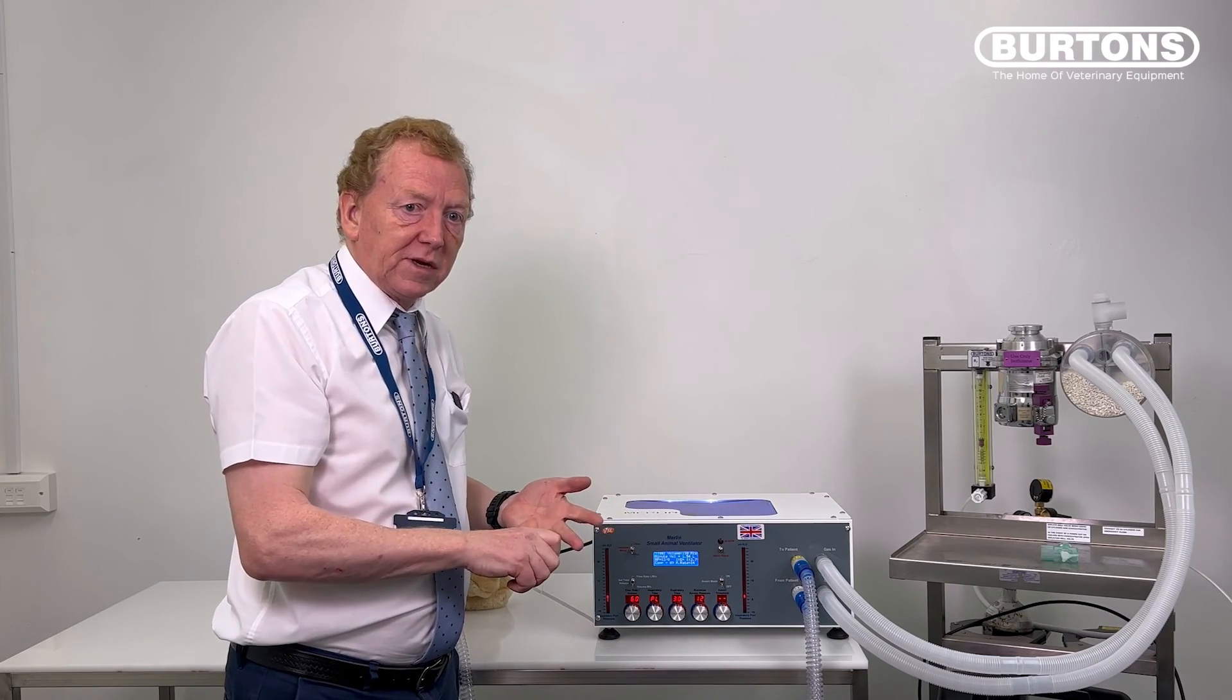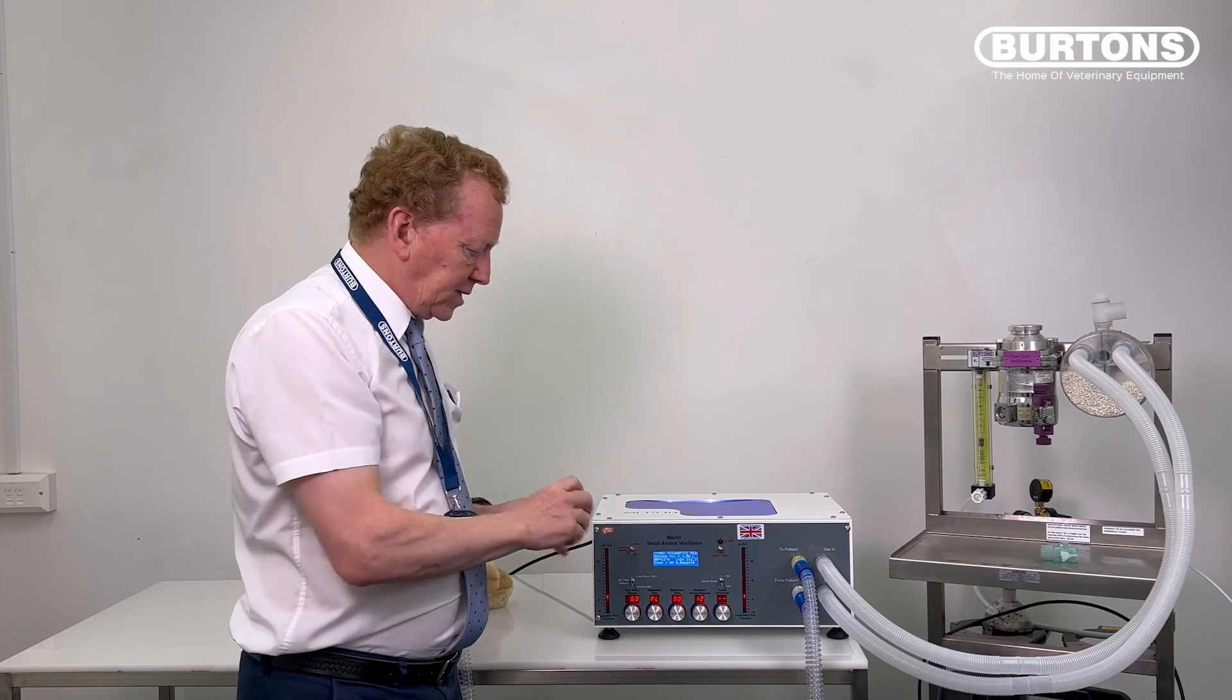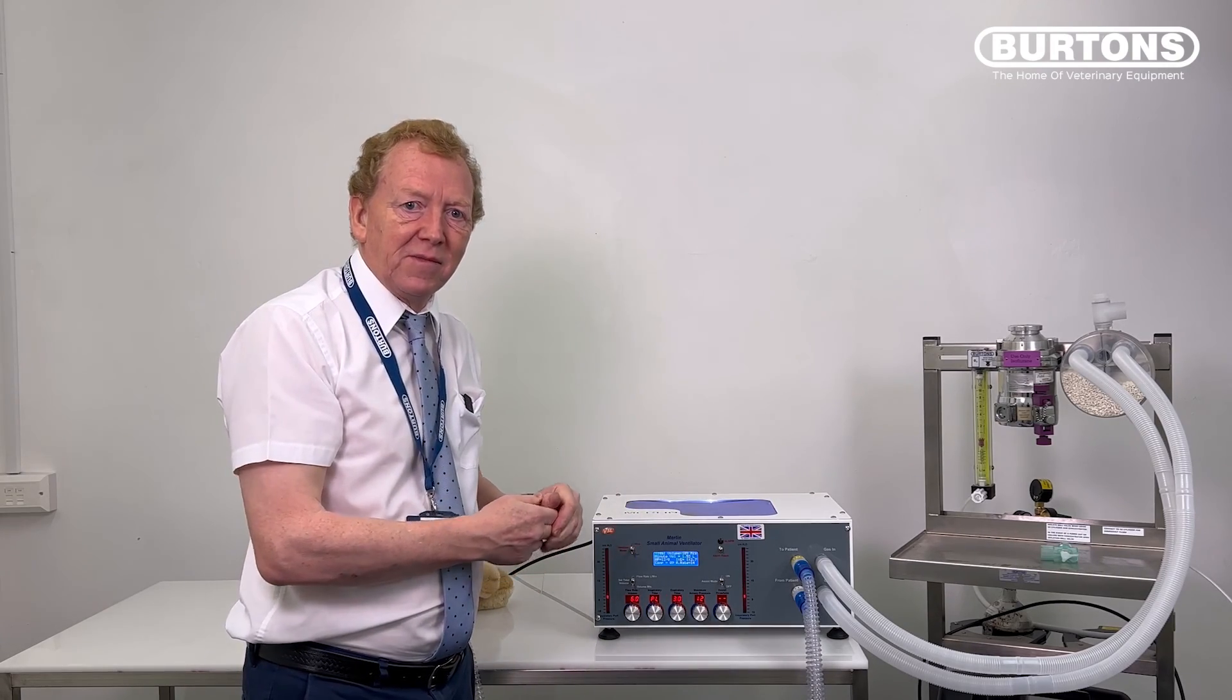So there you are. Coming in in the morning: do your leak test, do your performance test, check the setup of your rebreathing or non-rebreathing system, set the dials appropriately, connect your patient and go. Thanks for listening.